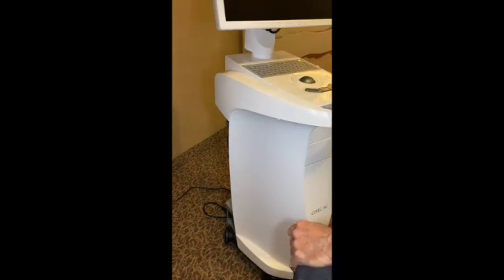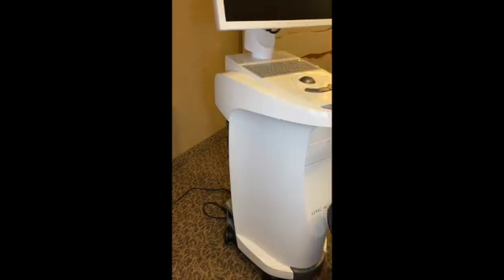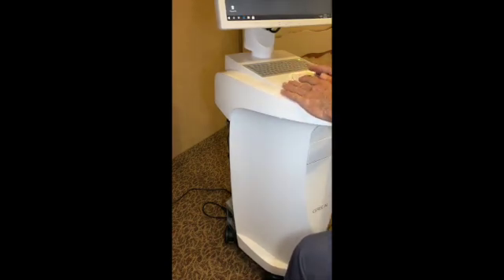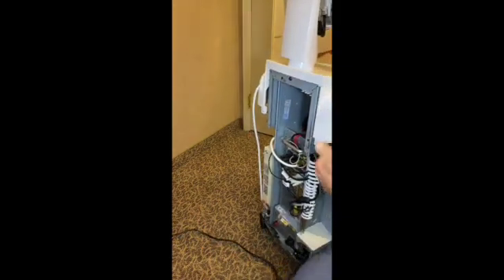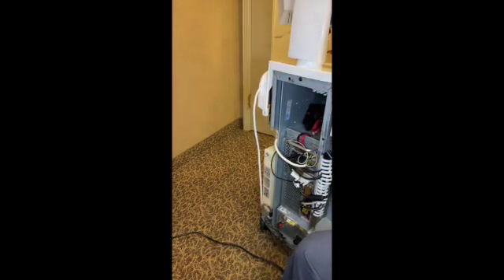Maybe it didn't like that RAM memory — we'll see. The prompt says 'CPU memory, please enter the setup,' so we push F1. And we're back, going through the whole process again. It's recognizing that I changed the memory. And now we're starting to boot into Windows — it's looking good. Everything booted up. The system's ready to go. Now I'll turn it back off, unplug the electrical and the backup battery, put the back panel on, making sure it lines up over here and over here — that's probably the most difficult part. Line that up, start putting the screws in, and that's how you can upgrade your system.